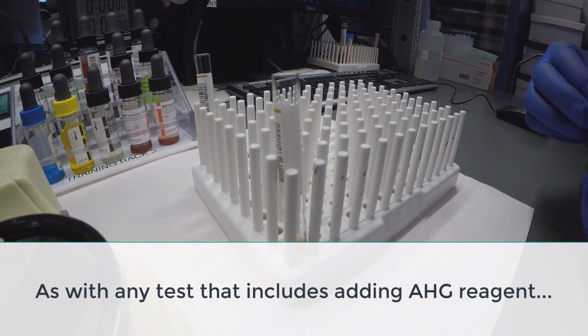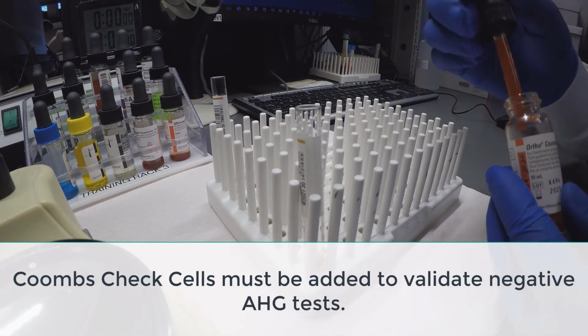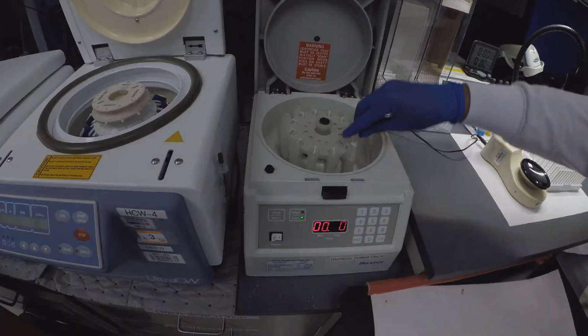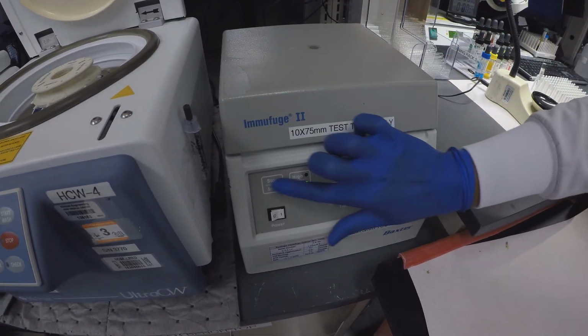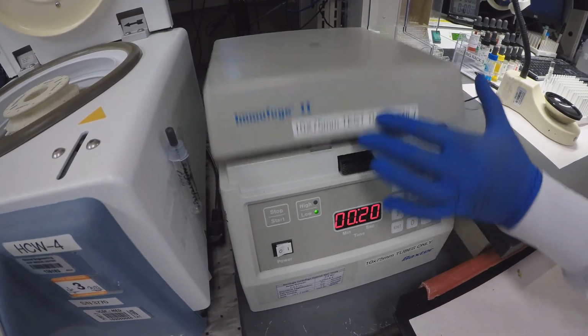Coombs check cells are added to tubes without agglutination, then centrifuged. Check cell agglutination confirms the negative result at AHG phase, which equates to a compatible serological crossmatch.